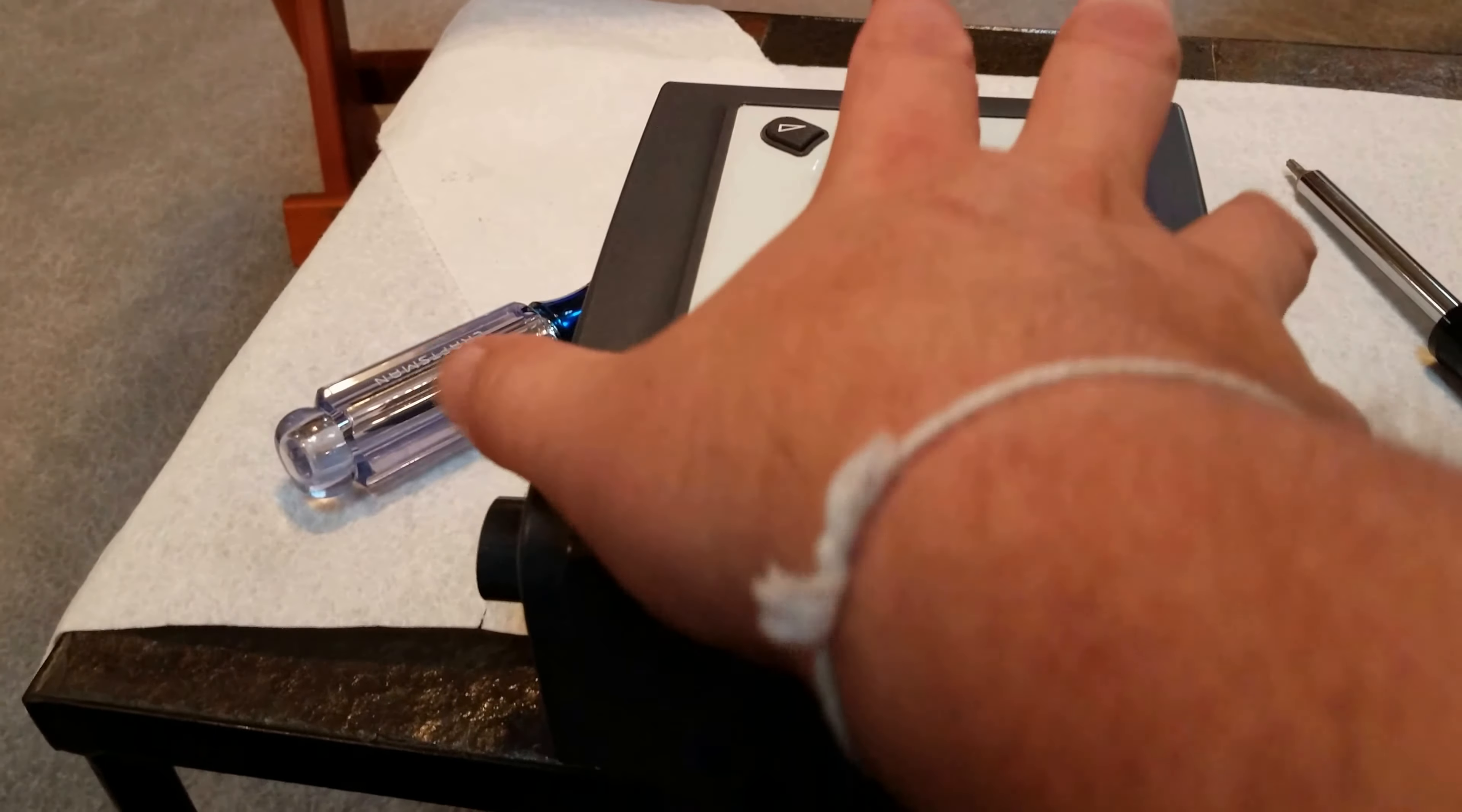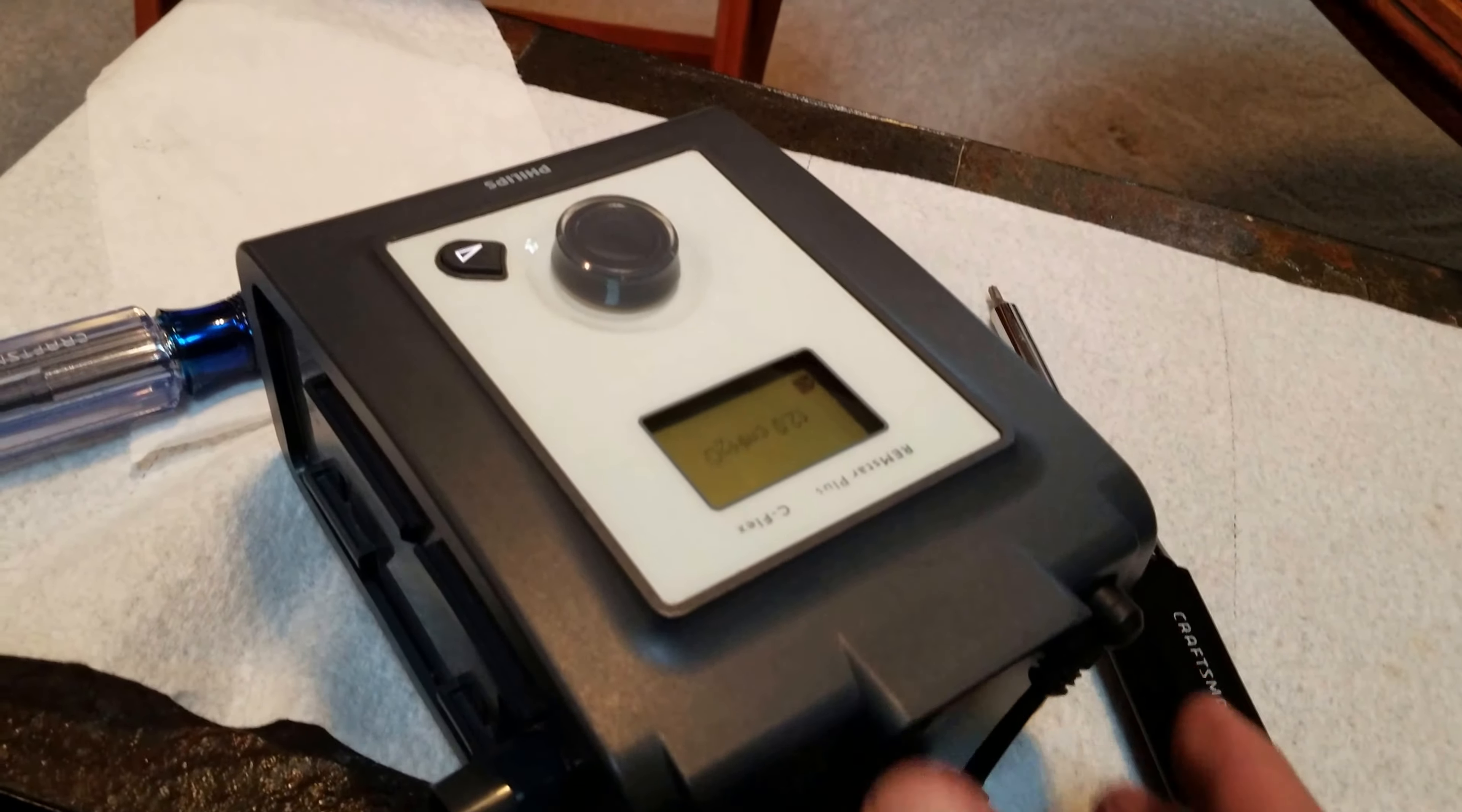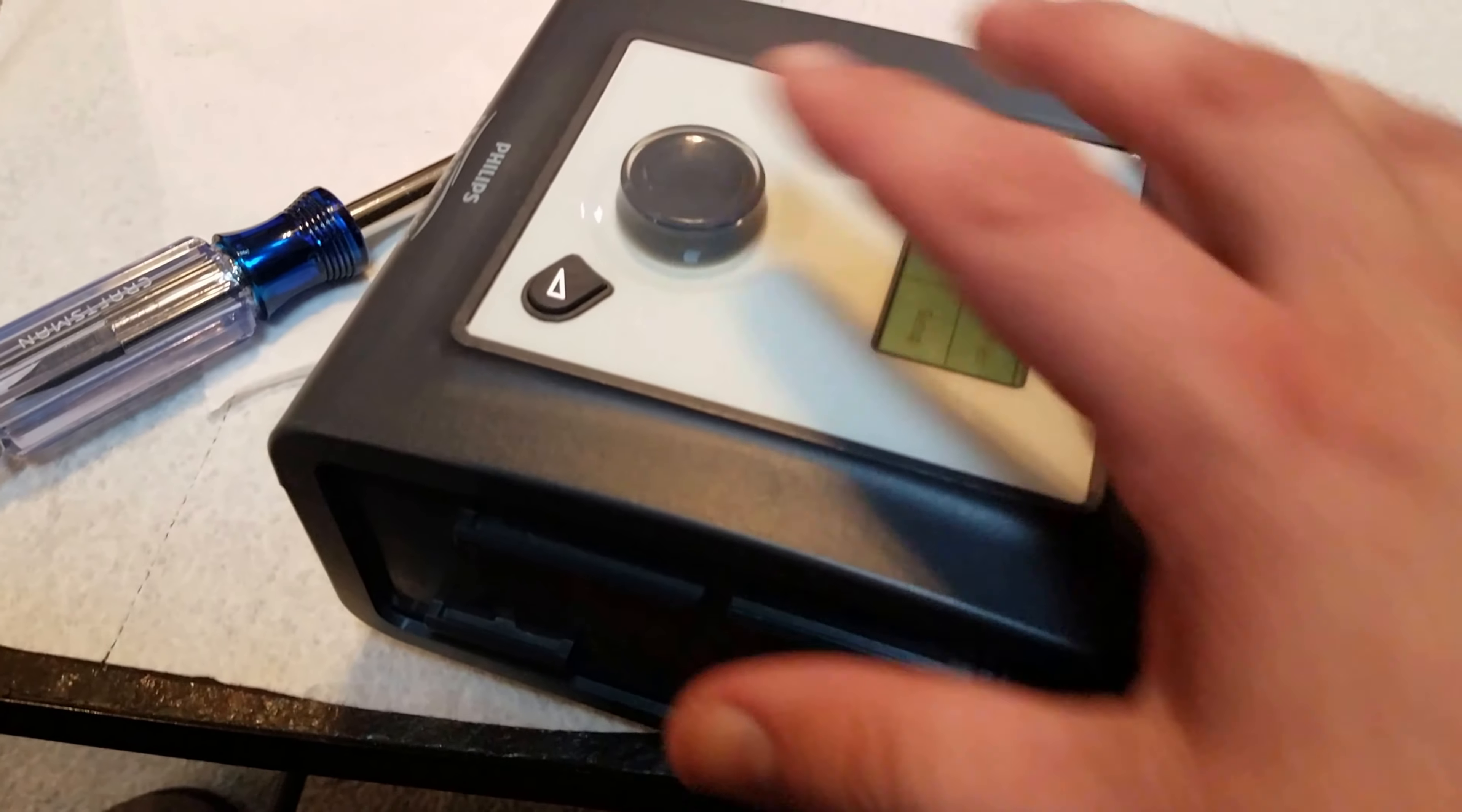Here comes the moment of truth or failure. This piece clipped right in. I put the SD card back in, I put my filter in. Not much else to say. I put the screws in on the bottom and I double-checked my screw tension on there. And here we go.